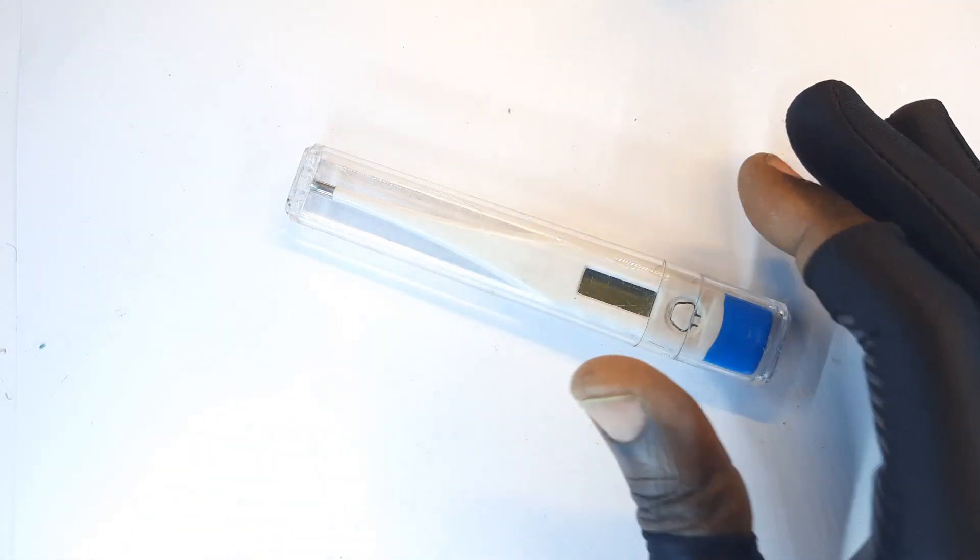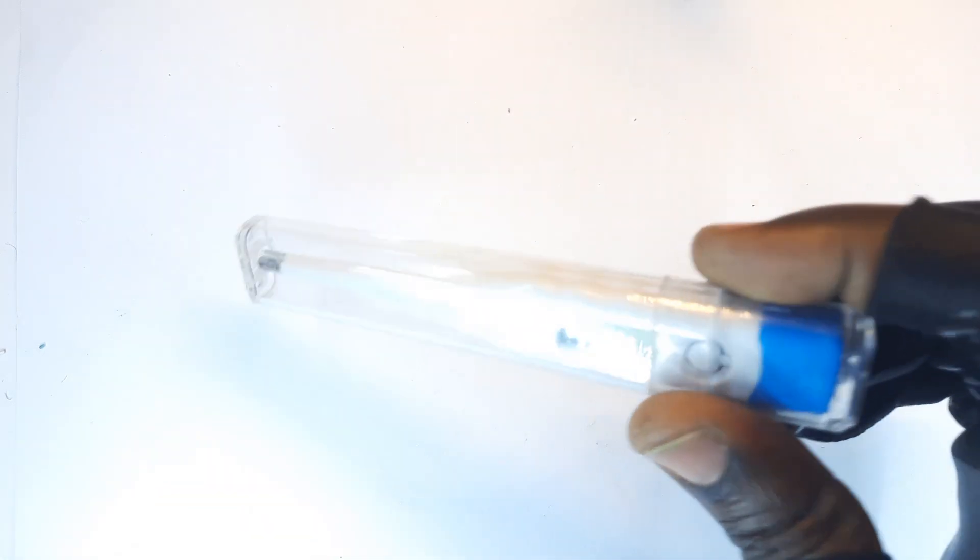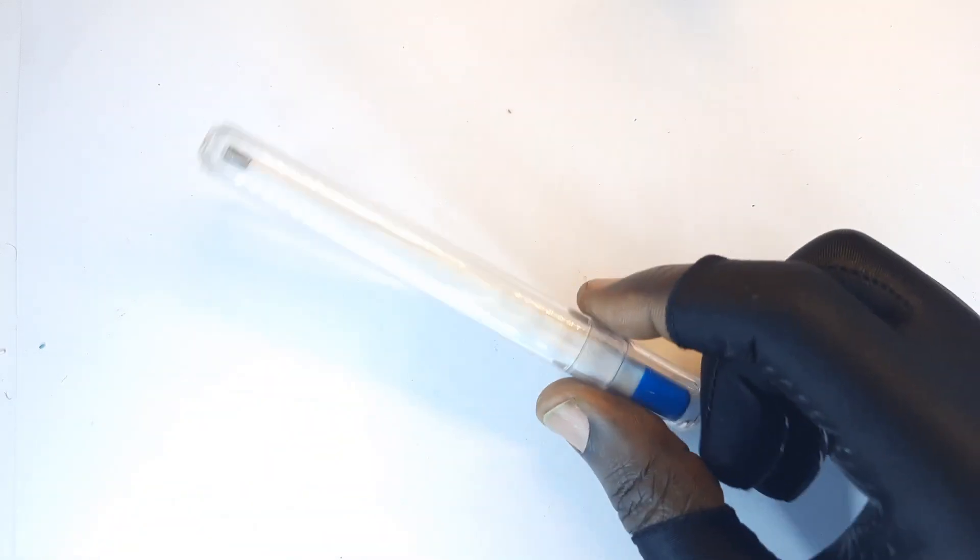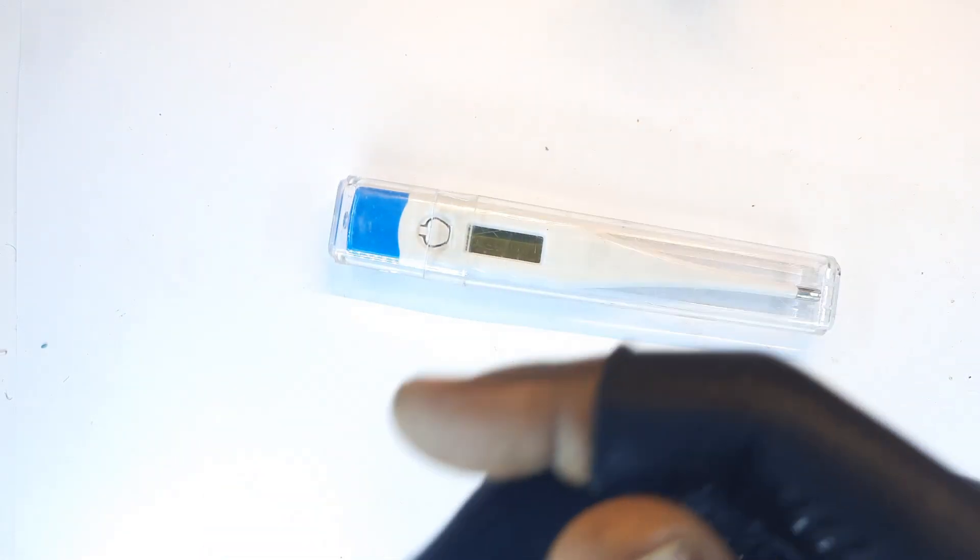This is simply for body temperature. And if you're in the tropical regions, ideally you've heard of the idea of malaria. Malaria is a tropical disease. And at times, this will really help you keep track of your body temperatures to see that after medication, it is dropping down steadily and in an acceptable way.